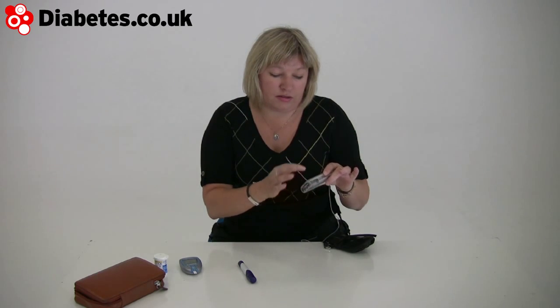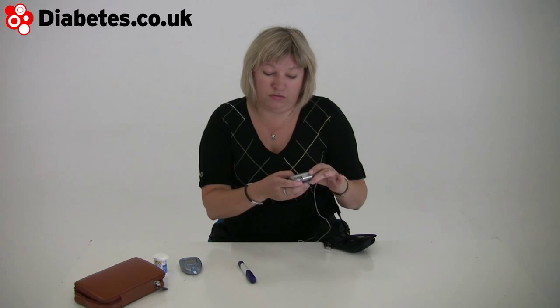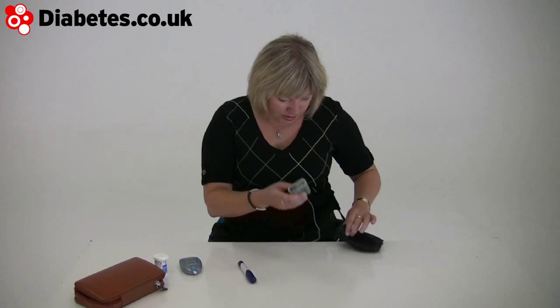You then say you're not taking any carbs, because I'm not going to. And it tells you don't take any insulin, which is fair enough. That's just me escaping out of that, telling me that I'm escaping out of it.